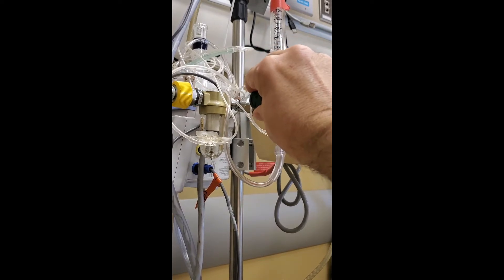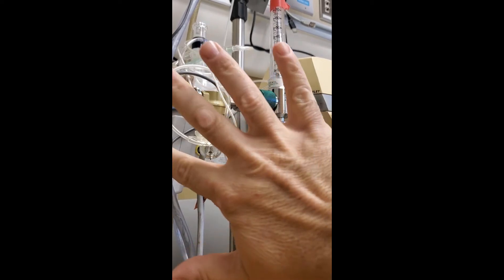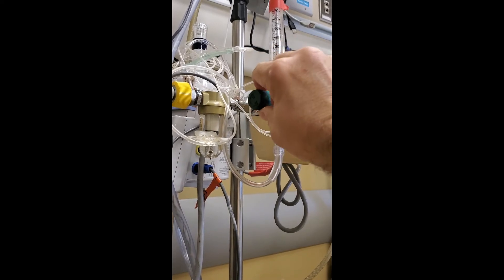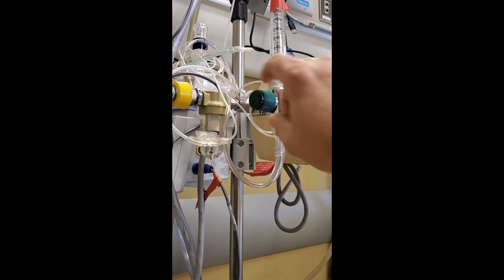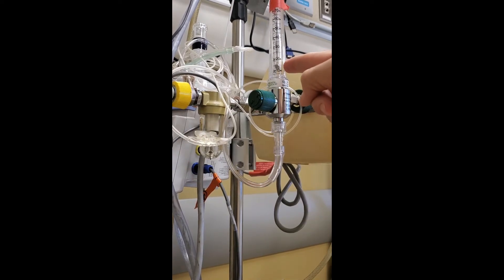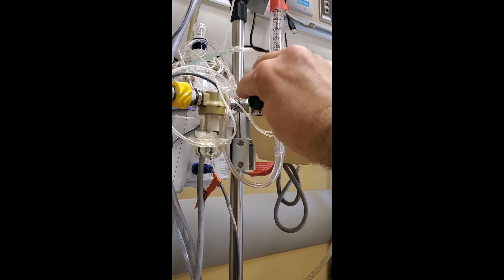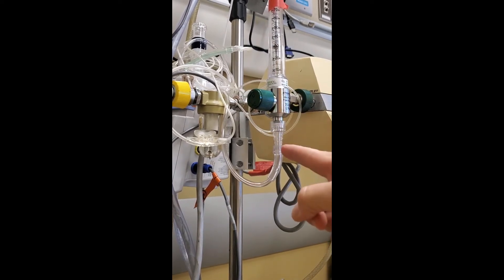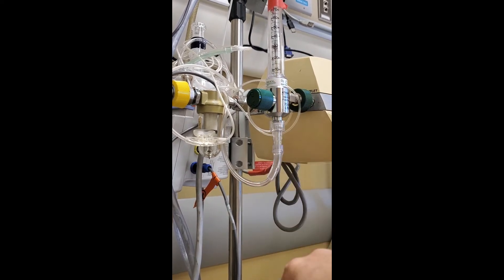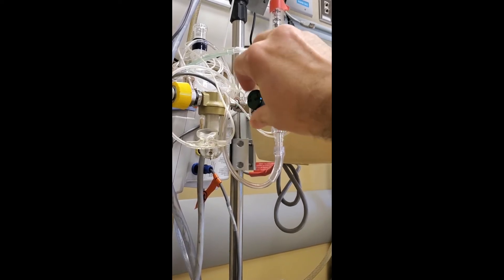So we're going to plug this into the flowmeter and turn it up to five liters a minute — what they say it's rated for — and it flows just fine, no big deal. Then we turn it up to 15, and nothing happens: it's carrying the oxygen flow just fine, it doesn't come off, it doesn't start whipping around. Just for fun, we turn it all the way up into the 40 range and then all the way up to 70 — you'll see it flopping around a bit — but you can see it's carrying the flows just fine.